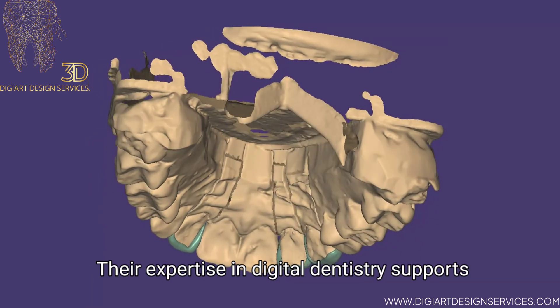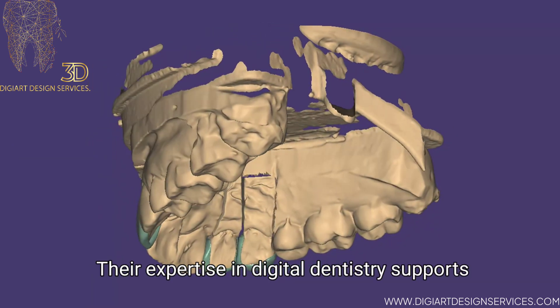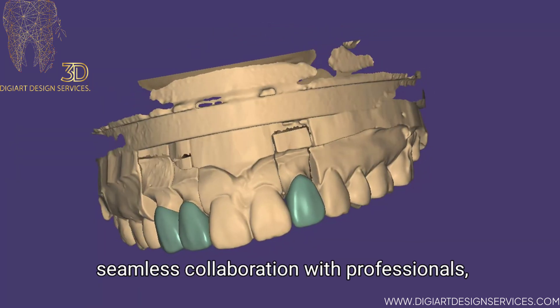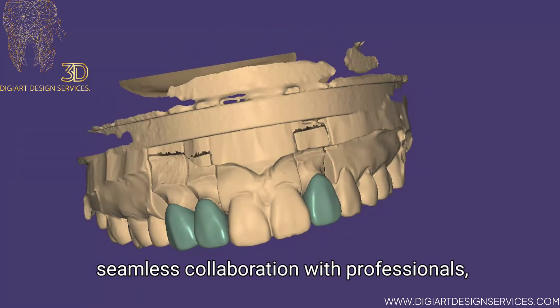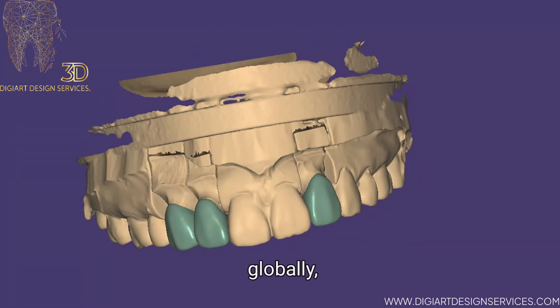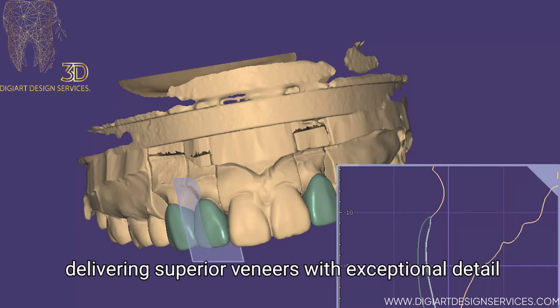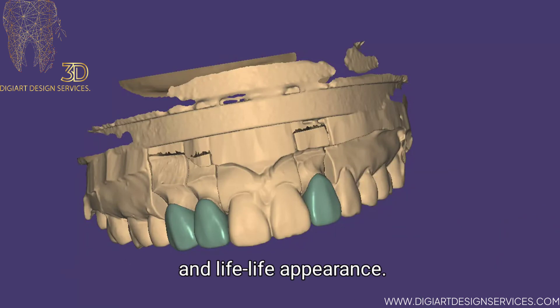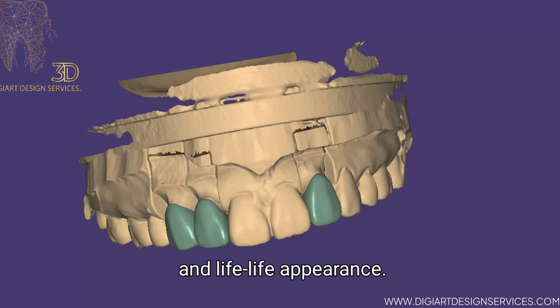Their expertise in digital dentistry supports seamless collaboration with professionals globally, delivering superior veneers with exceptional detail and lifelike appearance.